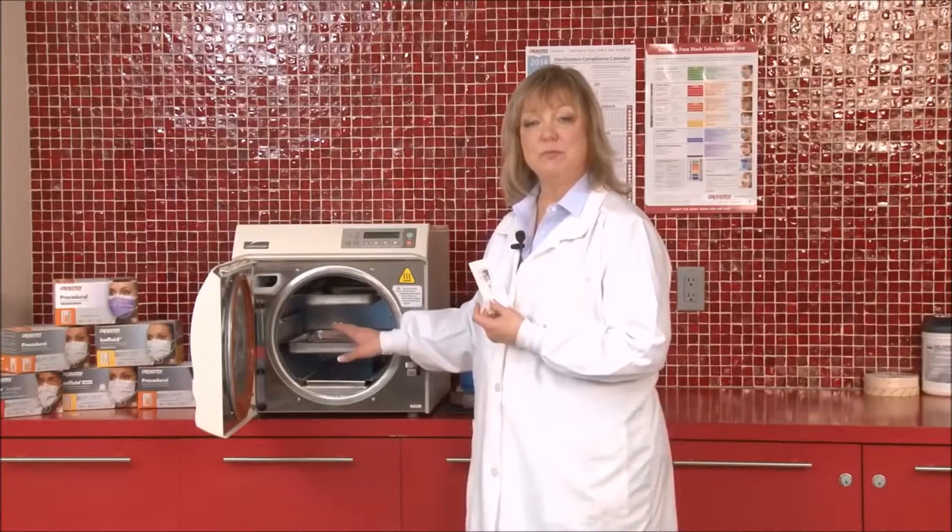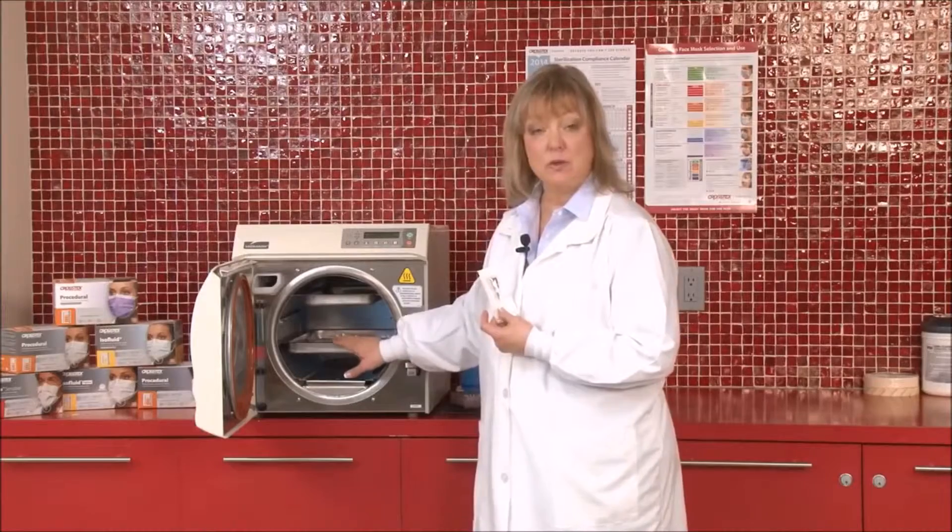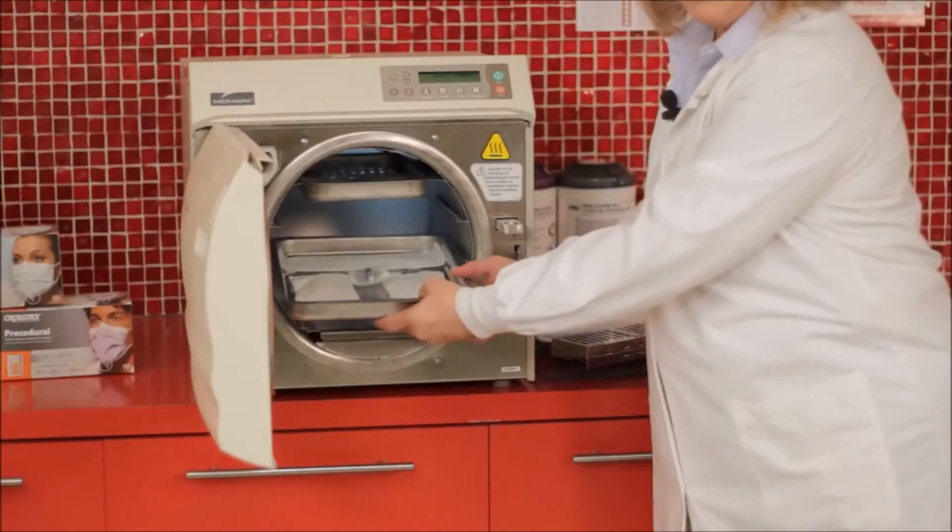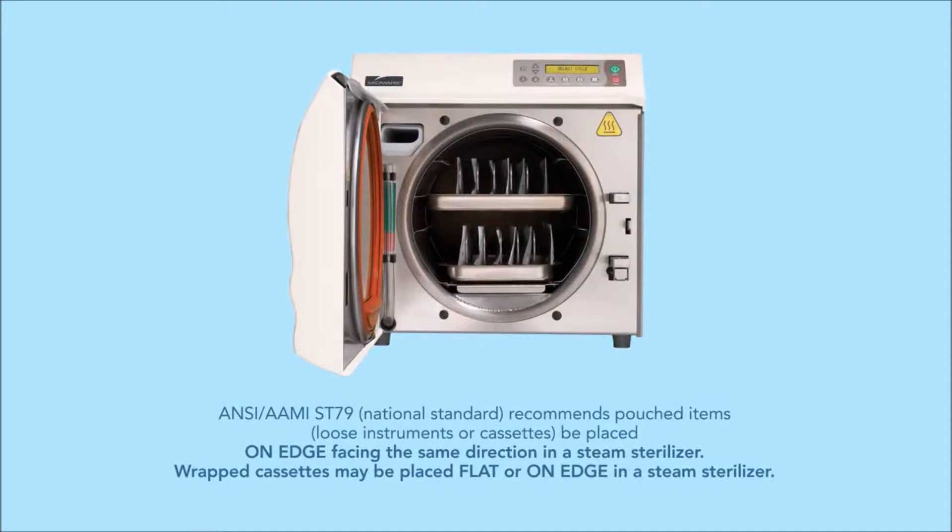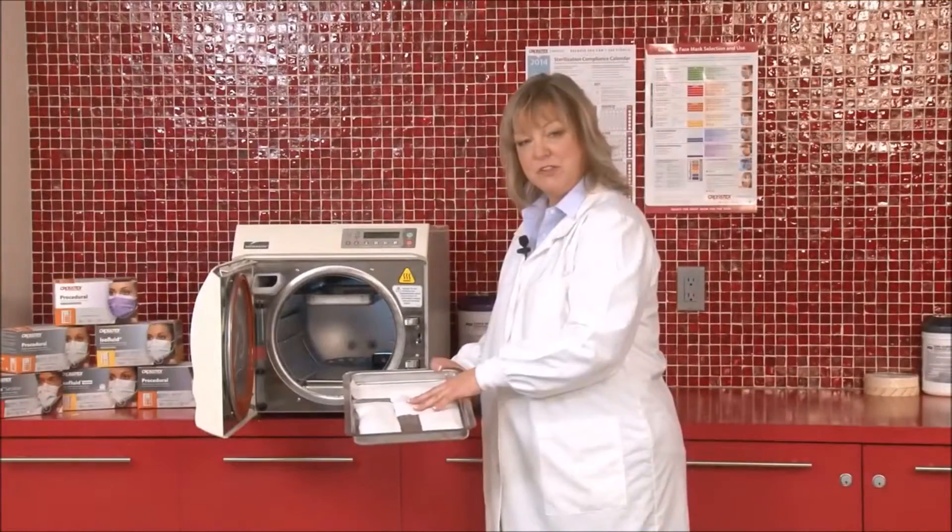The other place would be to position it by the door, where there may be an air leak if the gasket doesn't seal correctly. Again, you'll note that we're not placing it over any of the instruments. We're placing it in a single layer. We're going to place it paper-side up, because this is a gravity displacement sterilizer.